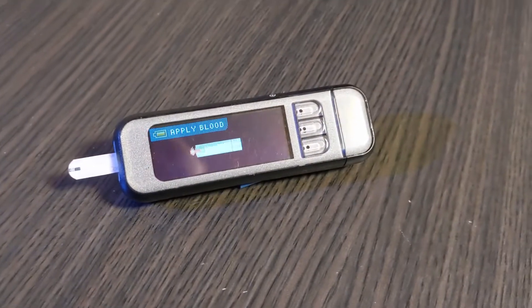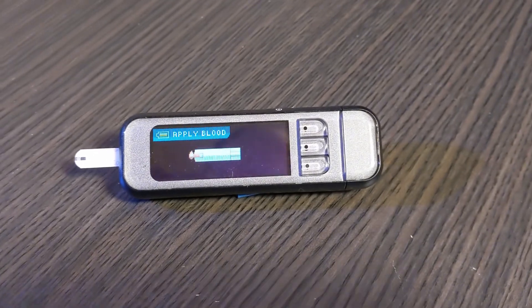That's something you kind of learned how to dial in based on your needs as you use it? Oh yeah, totally. You kind of learn how much you're exerting, how long you're going to be at it, and what your risk tolerances are. For me, it's a whole lot less risky to dial it down a ton, so much so that maybe after exercising my blood sugar is a little bit high, but I can test and fix that and get it right back to normal. But if I get too low, that's where more of the risks are for most diabetics, myself included.